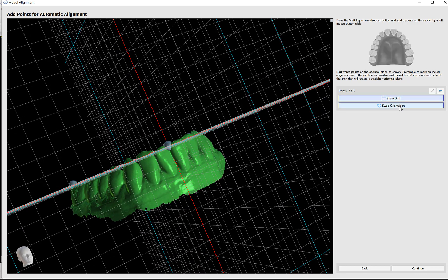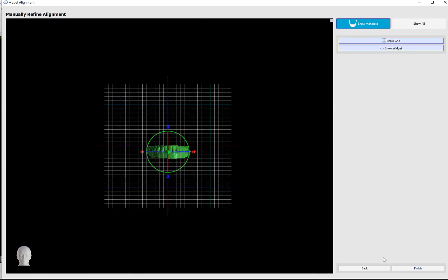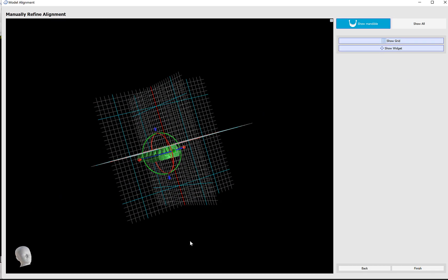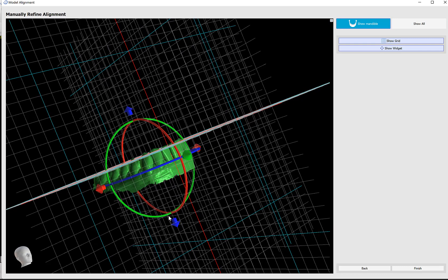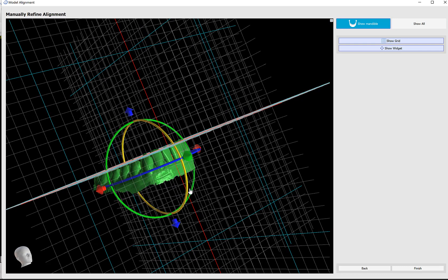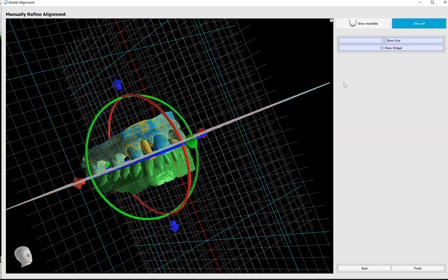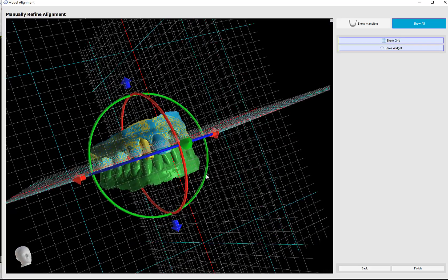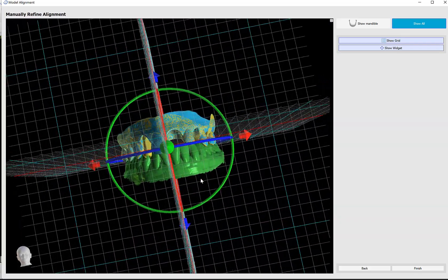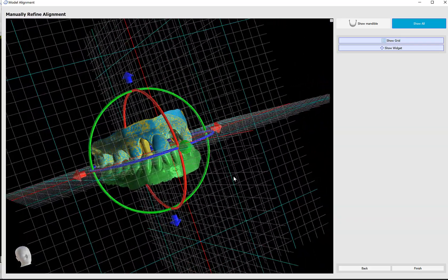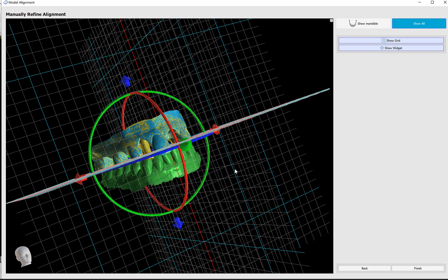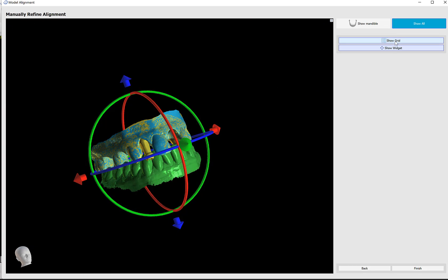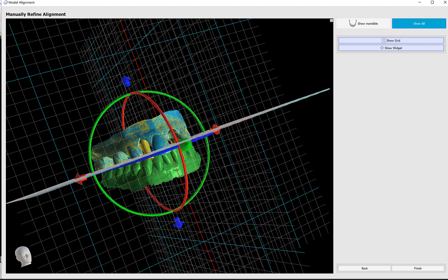We see how the model is now aligned to the grid. We could toggle on and off the grid and modify the orientation if needed. Clicking continue allows us to modify and fine-tune that placement. I have the widget visible on screen that I could use to rotate slightly. I have the option to show all my models and the other models move and are oriented as per the model that I rotated and moved. I think for our purposes now this is sufficient. I'm going to click on Finish.